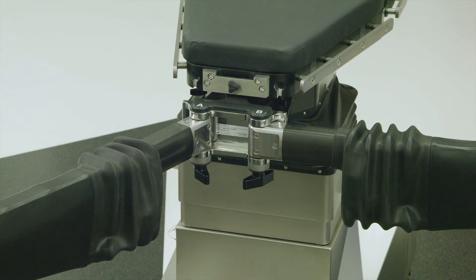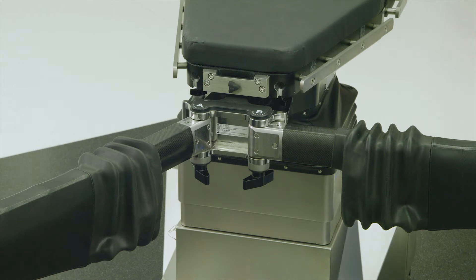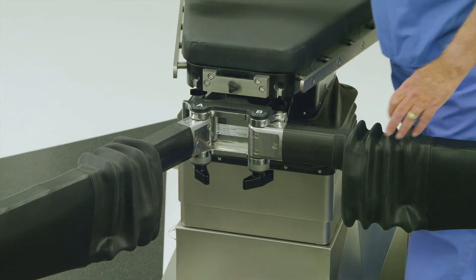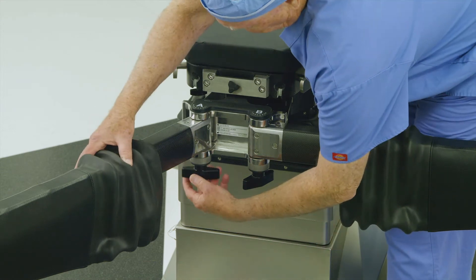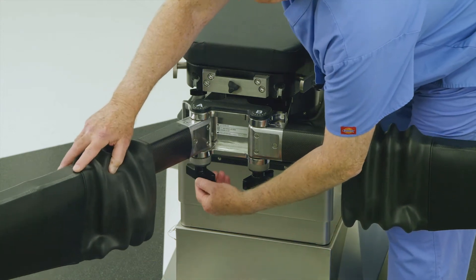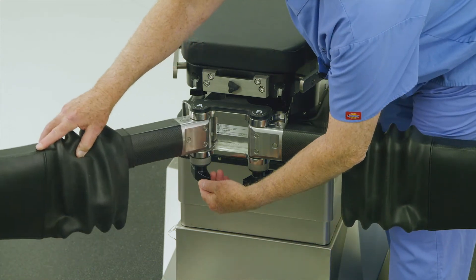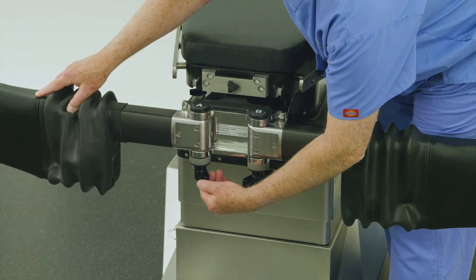To position the abductor spars for an IM nailing in the supine position with skeletal traction for an operative left leg procedure, begin by loosening the knob below the A rosette and set the A joint to the X position, then re-lock the A rosette handle.